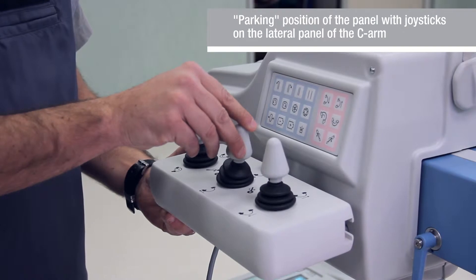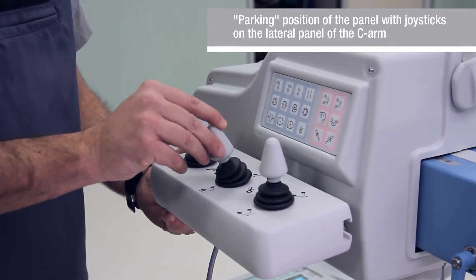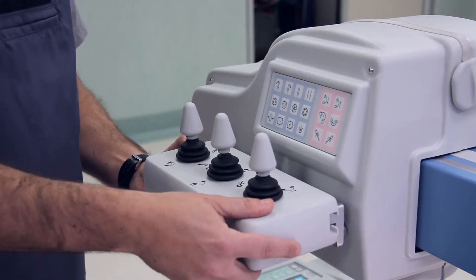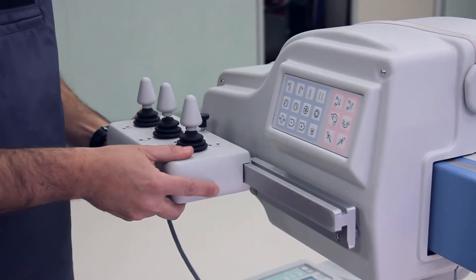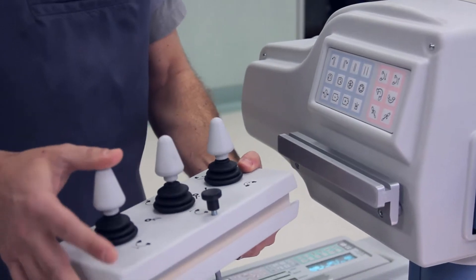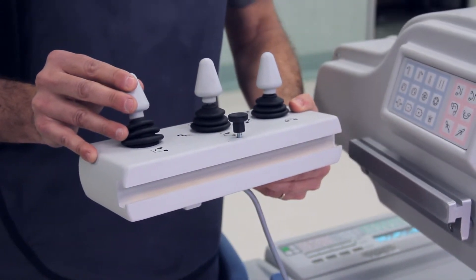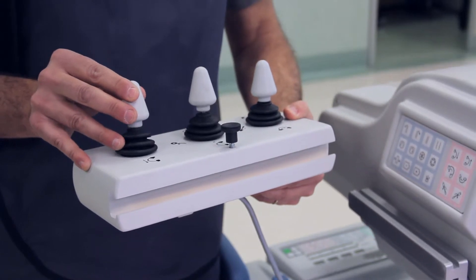The control panel may be attached to the left or right side of the C-arm stand, depending on the position of the unit in an operation. The joystick panel has a long cable so one can operate the C-arm from any position in the operating room.